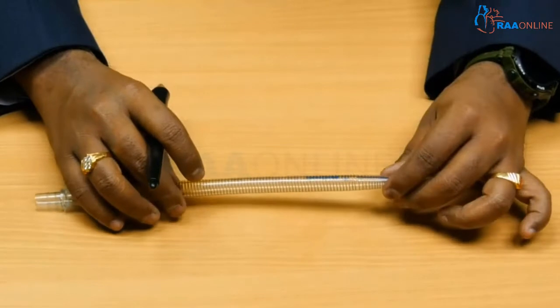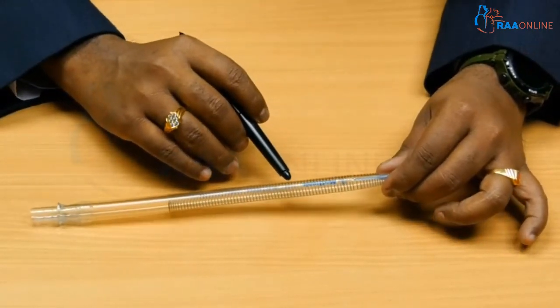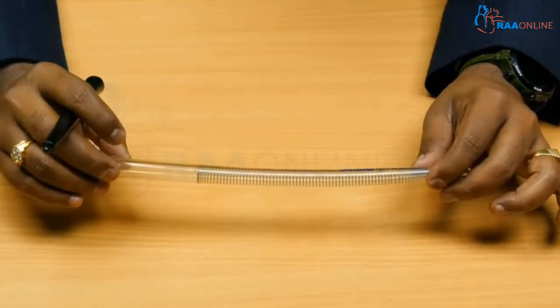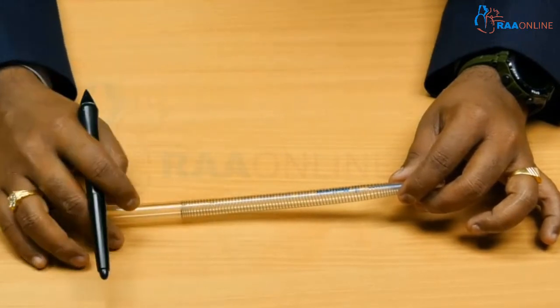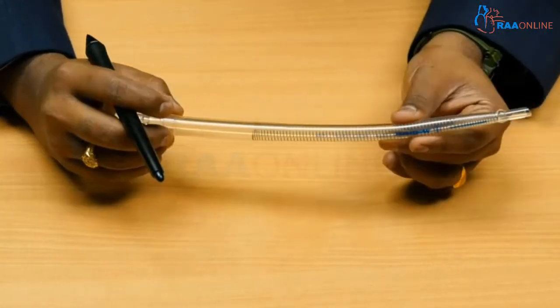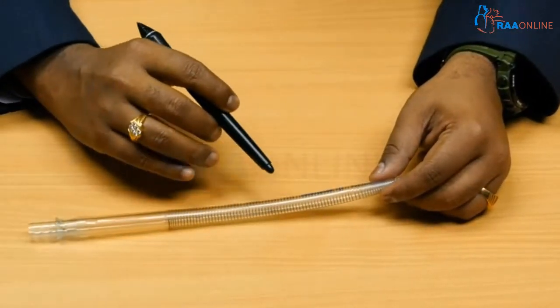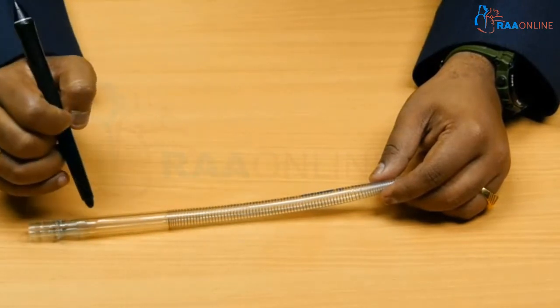These cannulas come in a variety of sizes, starting from 18 French to 22 French. This particular one is a 20 French cannula. These are adult cannulas for adult patients, with flow ranges between two and a half liters to six liters.